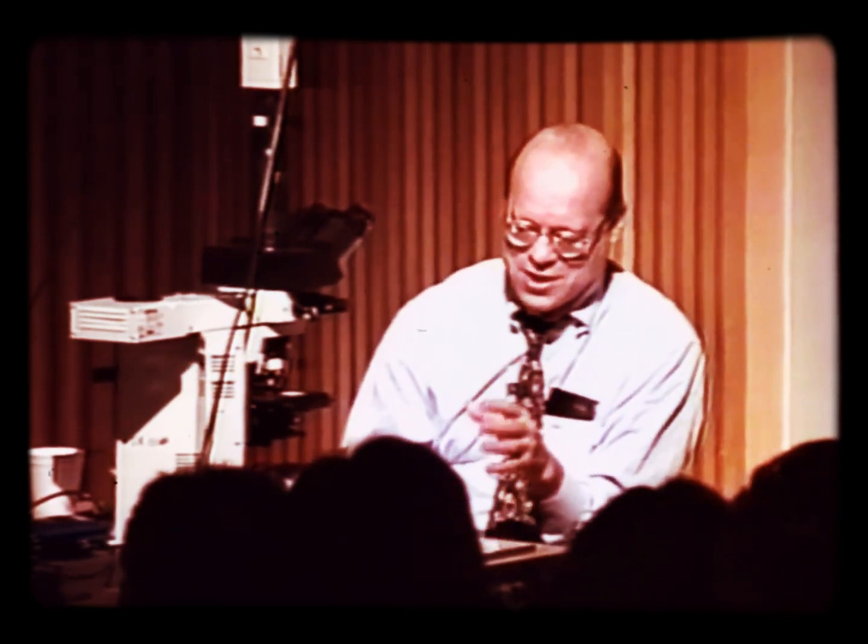Now, you shouldn't be distracted by lamellar fibroplasia and concentric fibroplasia, et cetera. They don't help you. But for the reasons mentioned, this is a melanoma.